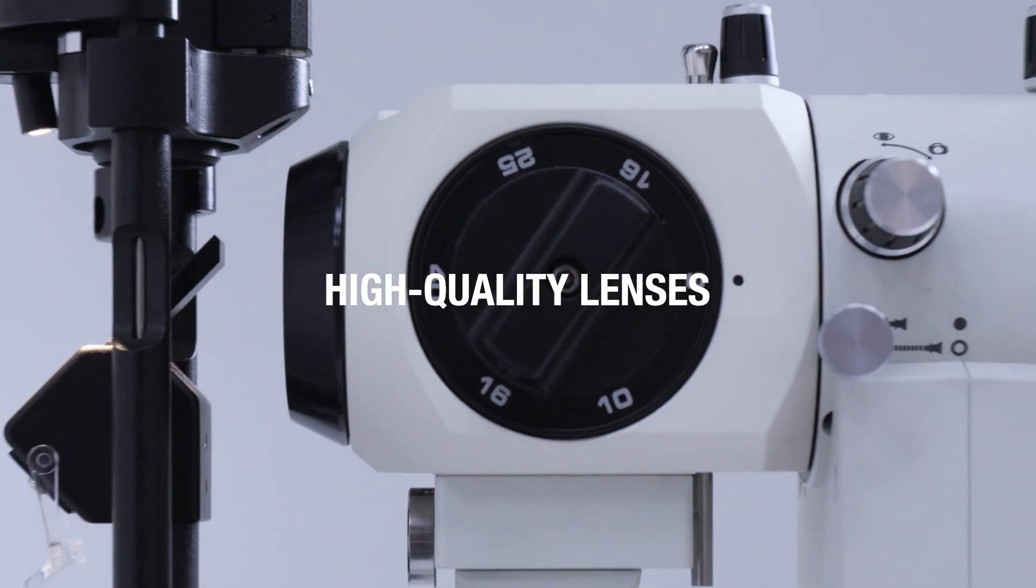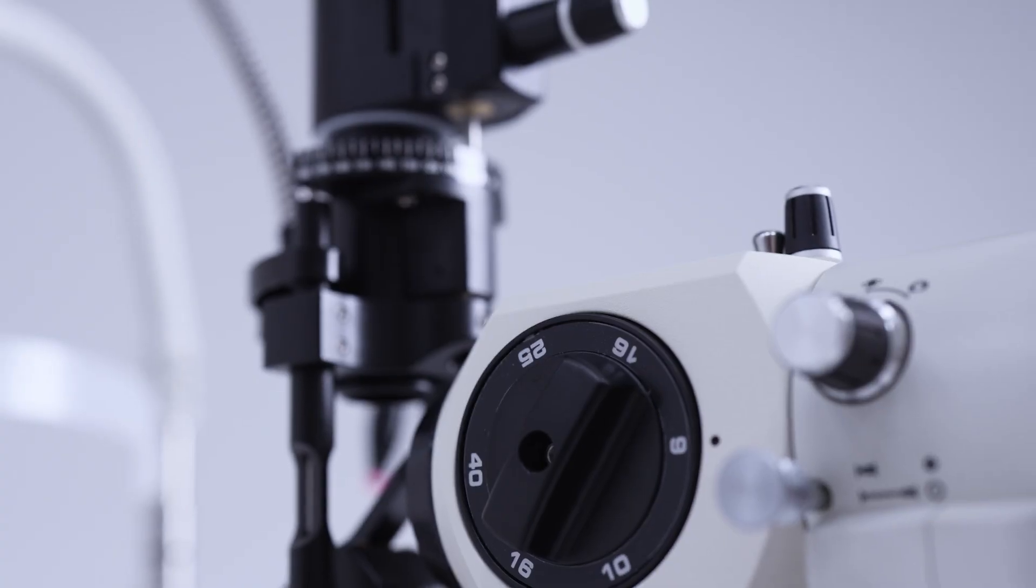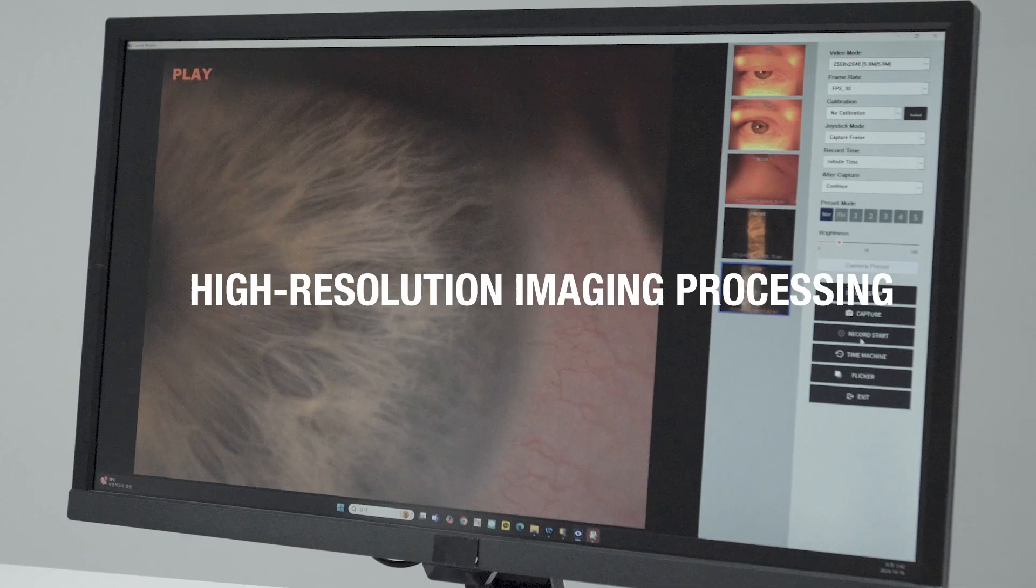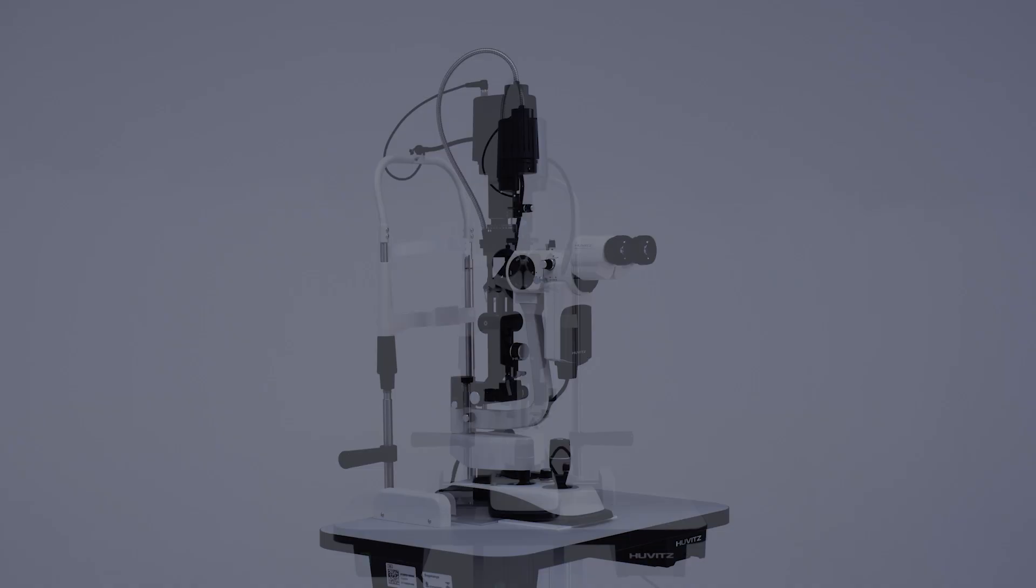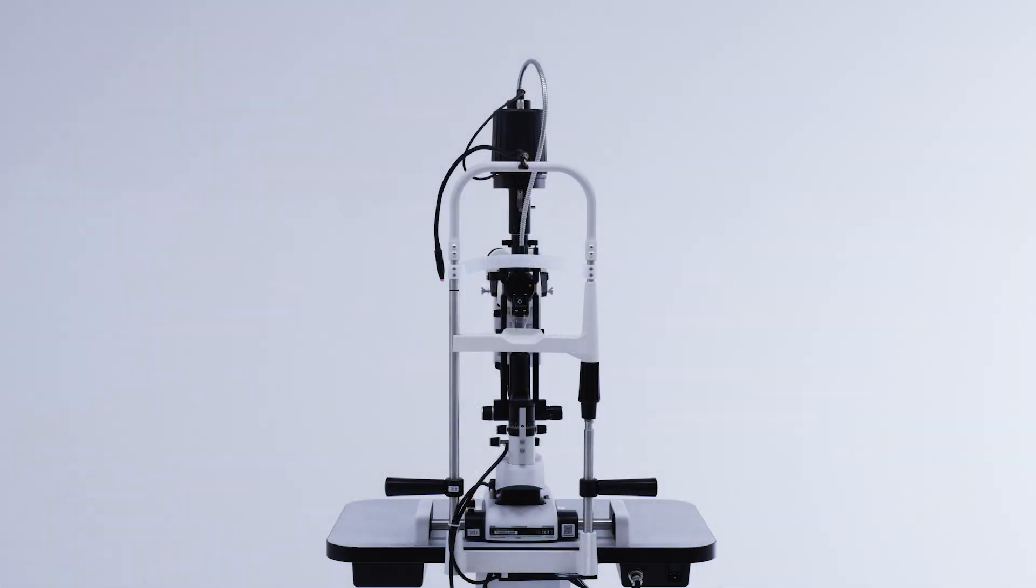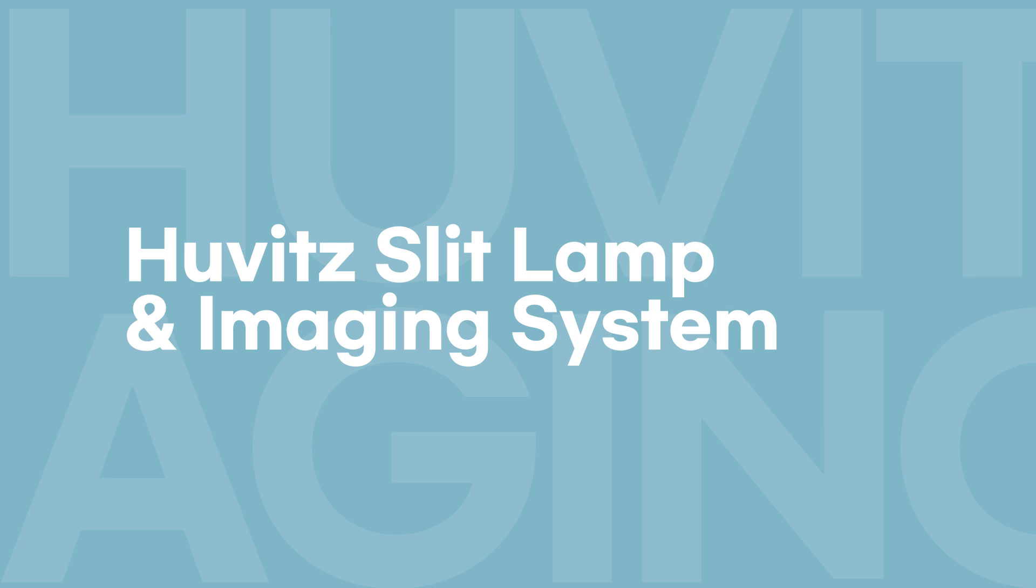With high quality lenses and high resolution imaging processing to captivate professionals, this is the Huvitz slit lamp and imaging system.